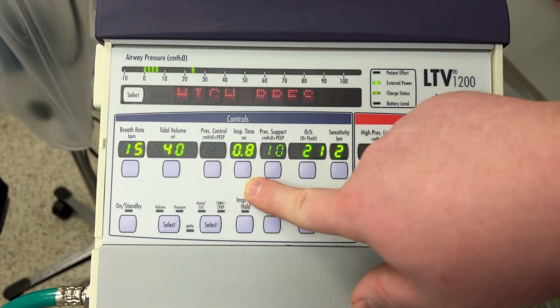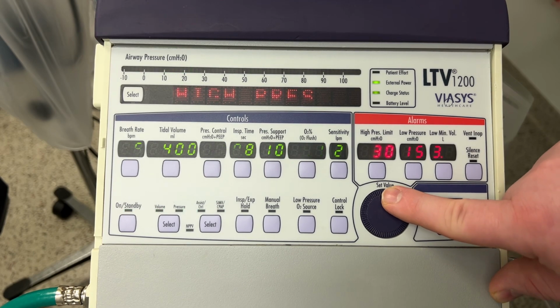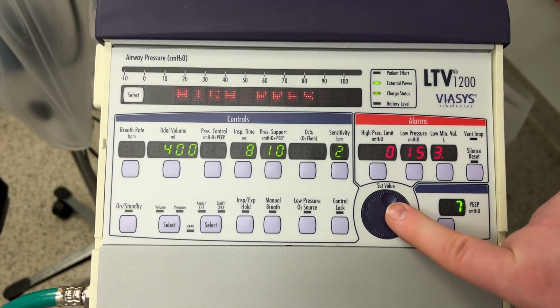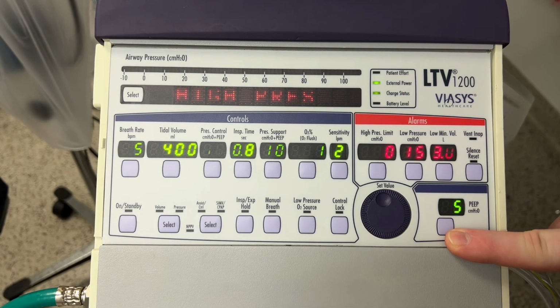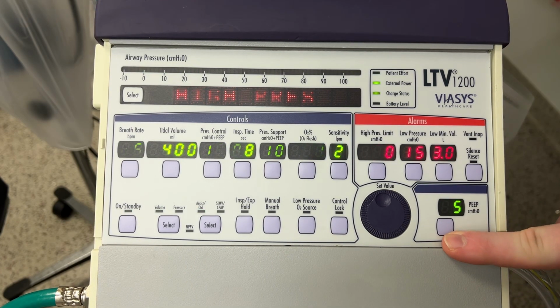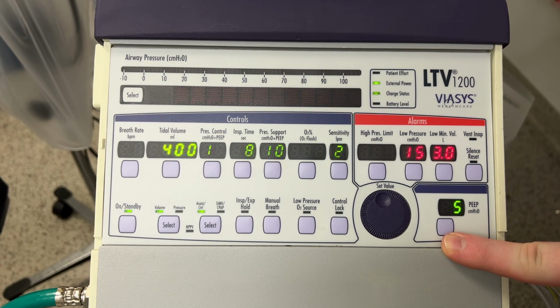There we go, I just changed it to 400. Now the lung that I'm currently using, the fake training lung, has a max of like 800 mils. So it's a fairly small volume. But then again, humans have a lot less volume in their lungs than you would expect.